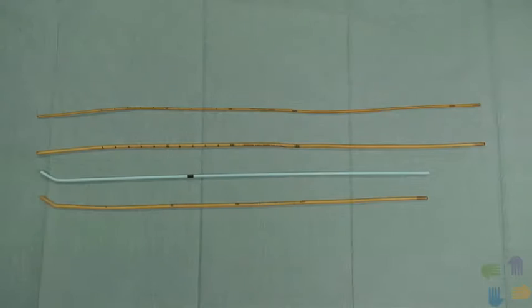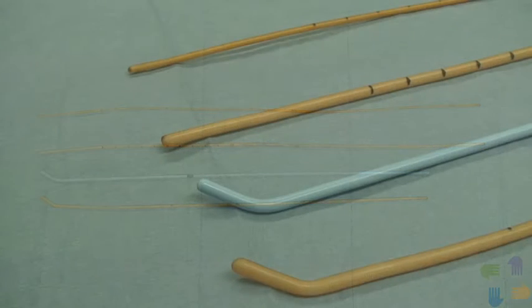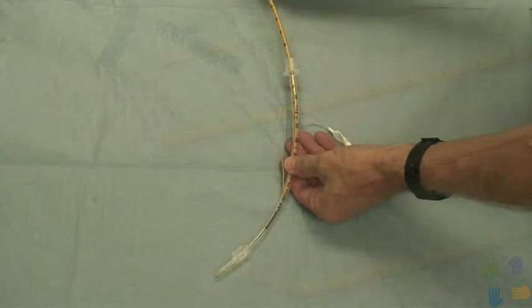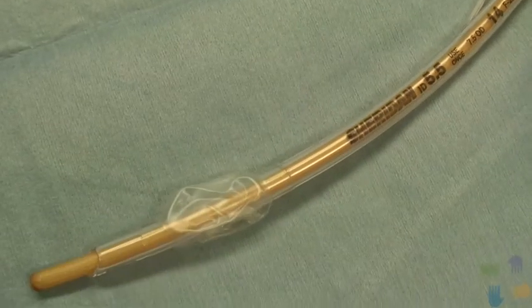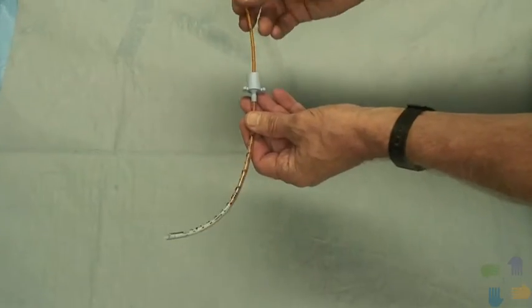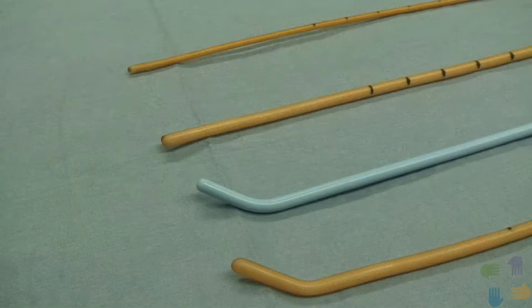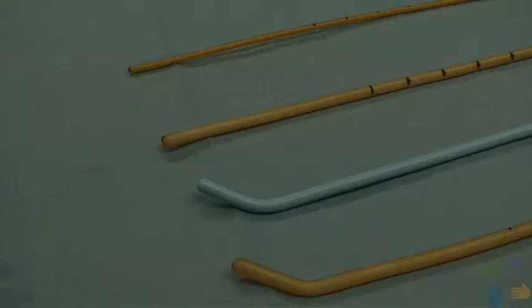There are 4 tracheal tube introducers, also known as a bougie, that are available in our emergency department: the classic gum elastic bougie, a synthetic tracheal tube introducer, the straight gum elastic bougie, and the pediatric gum bougie. The classic bougie is reusable, while the synthetic bougie is disposable. They're otherwise similar. The adult bougies will accommodate a 5.5 millimeter endotracheal tube. The pediatric bougie will accommodate a 4.0 tube. For clarity, from here on in, I'll be referring to this airway adjunct as a bougie.